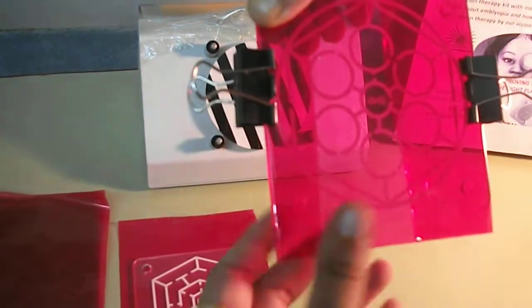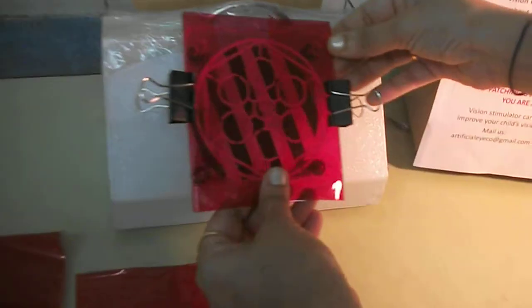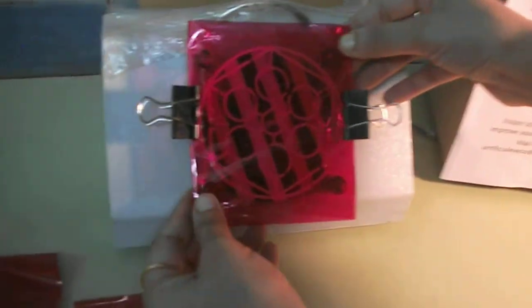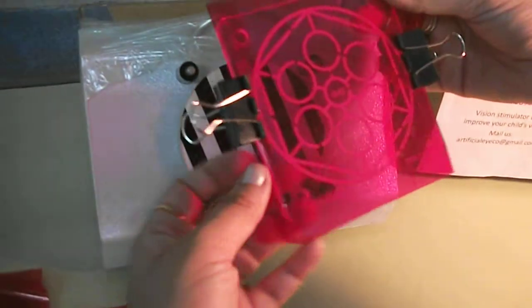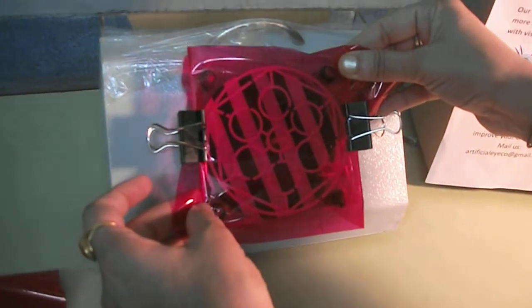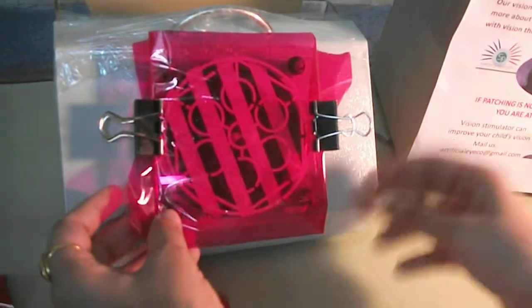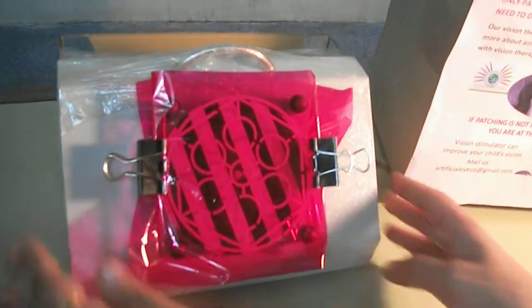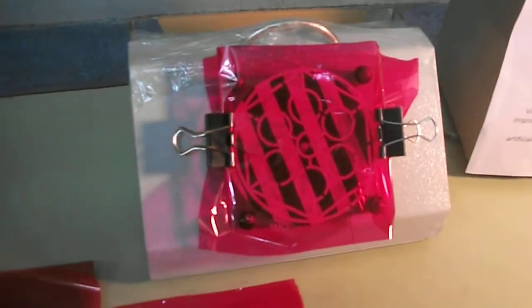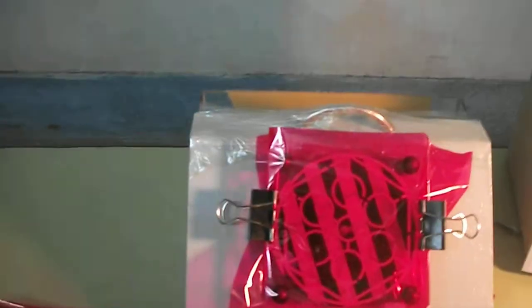So once the paper is fixed, you are going to place this paper on this machine like this. So once it is placed, what will you do now? Well, now switch on this machine.